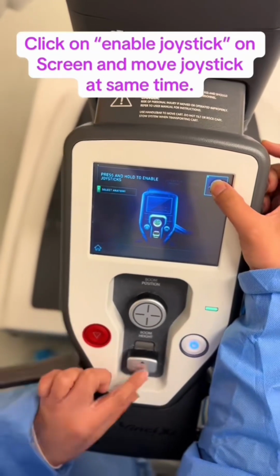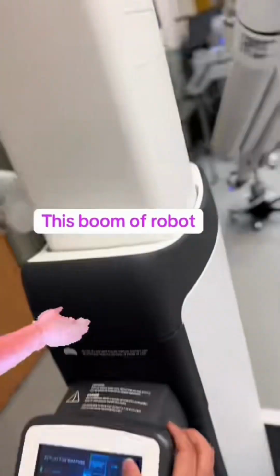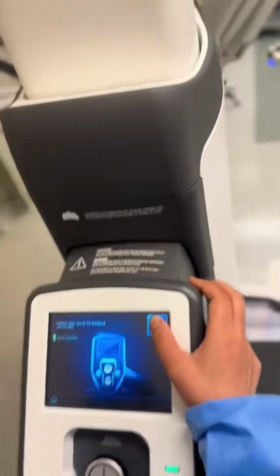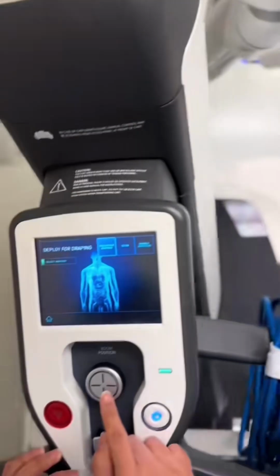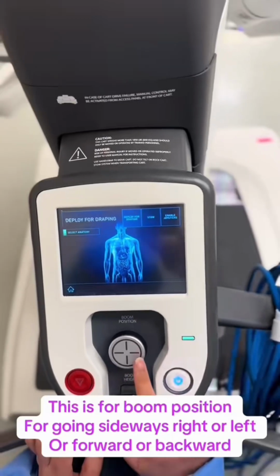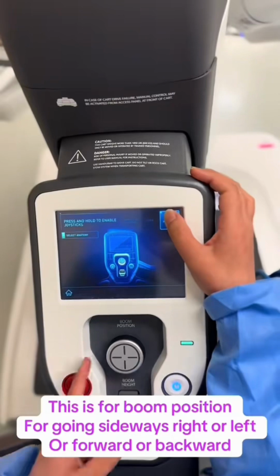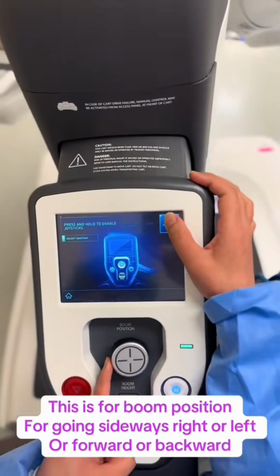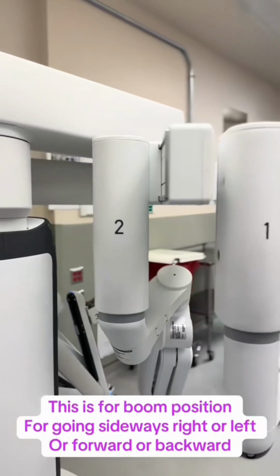For example, click on enable joystick and move the joystick that says boom height upward to increase the height of the boom or robot, or move the joystick downward to decrease the height. Similarly, there is another joystick that says boom position to move the boom right, left, forward, or backward. For example, here, if I move the joystick towards the right, the boom will move towards the right.